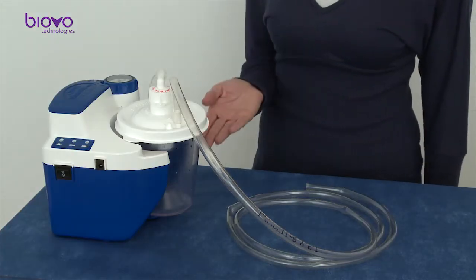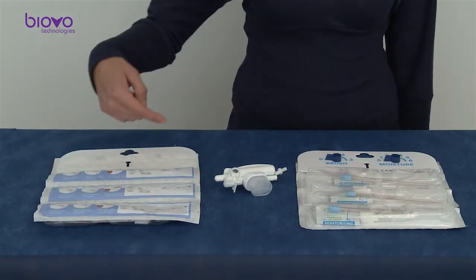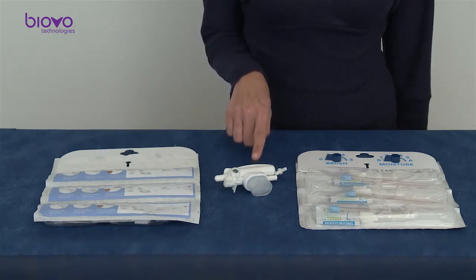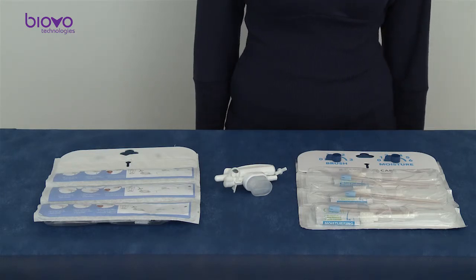To begin with, you need available a suction canister and a suction line. The kit contains a substrate board with instructions on the back, a brush handle with suction connection, and a set of brushes for 24 hours. Your kit may also include a package of oral care liquids.